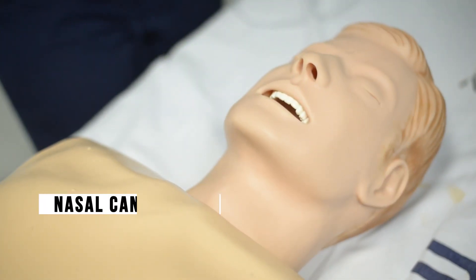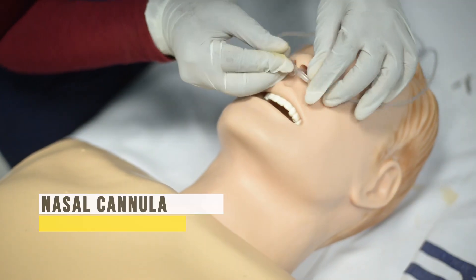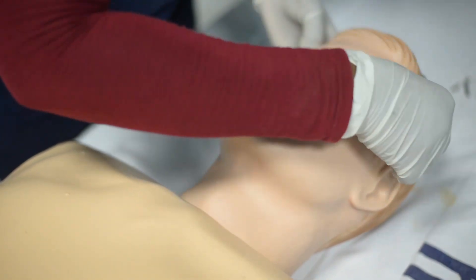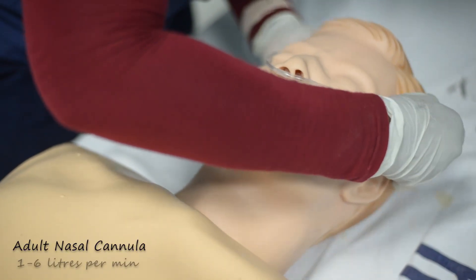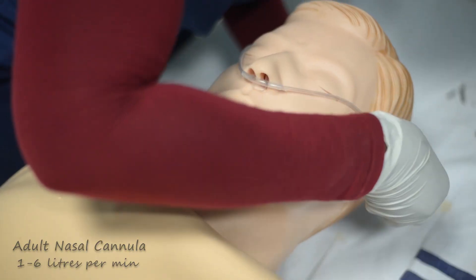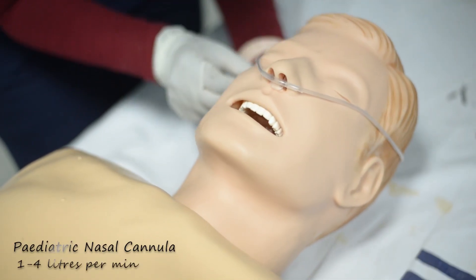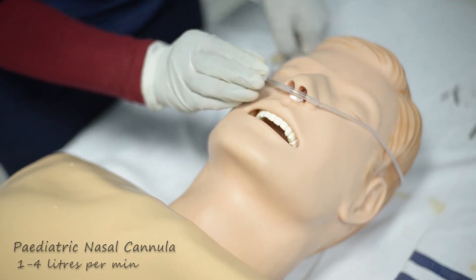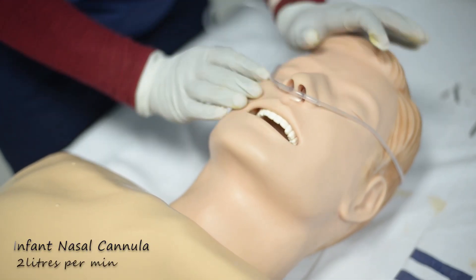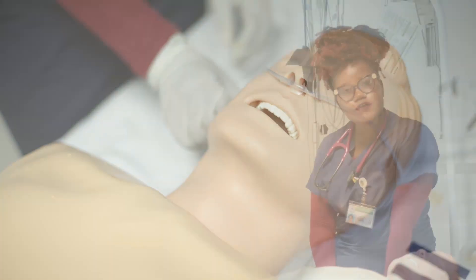A simple nasal cannula is used in patients who require low oxygen needs. An adult nasal cannula delivers 1 to 6 liters of oxygen per minute. A pediatric nasal cannula delivers 1 to 4 liters per minute, while an infant nasal cannula delivers 2 liters per minute.